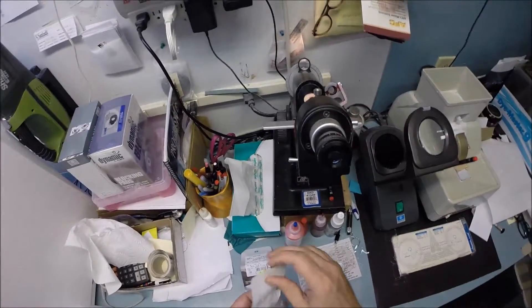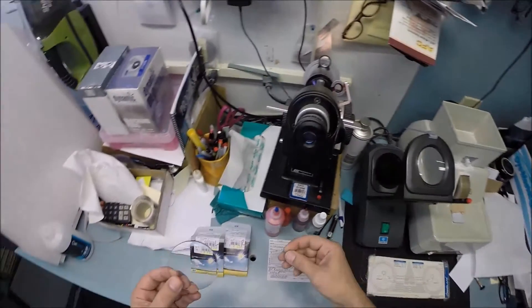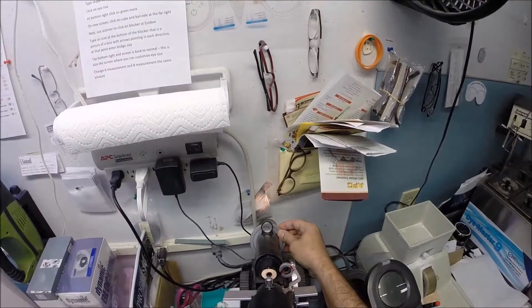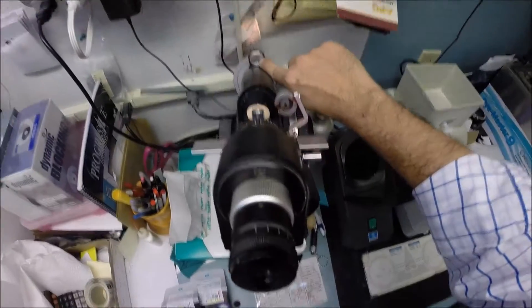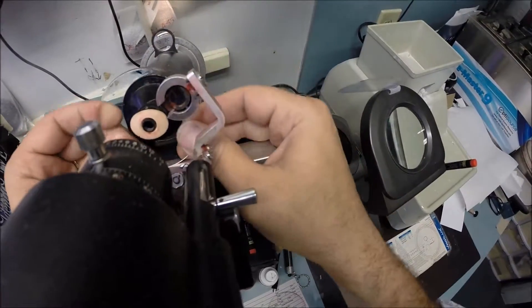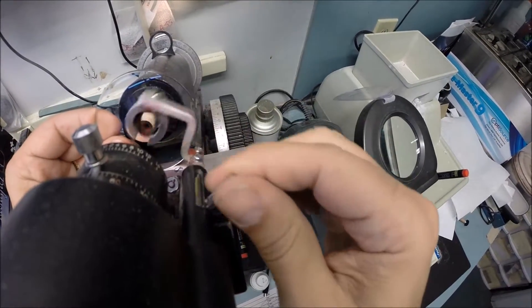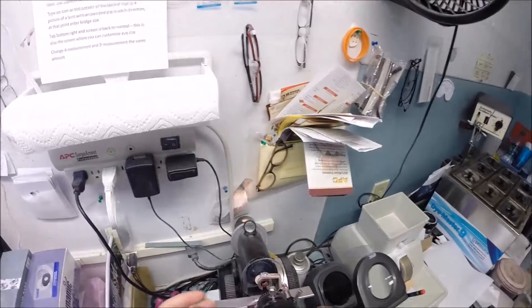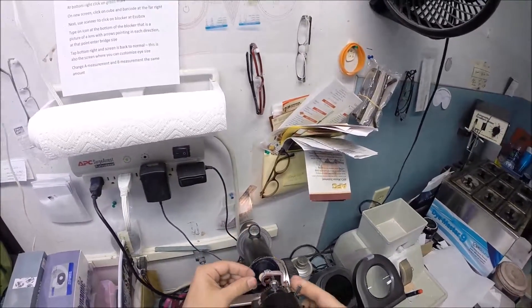Let's do the same thing now for your left lens. Take off the protective sleeve and coating. The axis on the left eye is 20. I'm going to spin the axis wheel to 20. The power is minus 1.25, so I'm going to set it there. Rotate your lens until the sphere power comes in clearly.